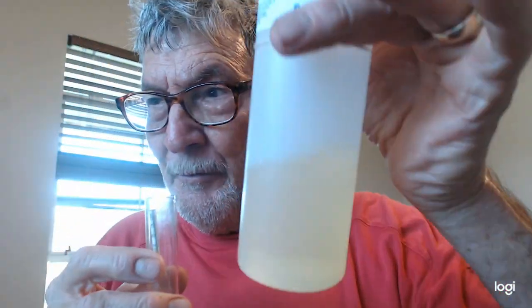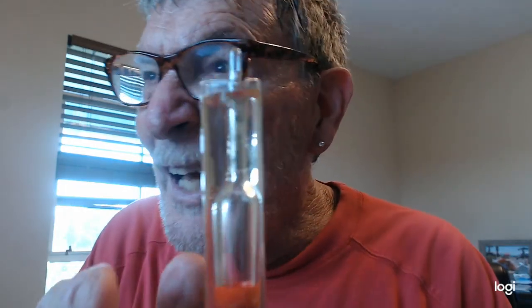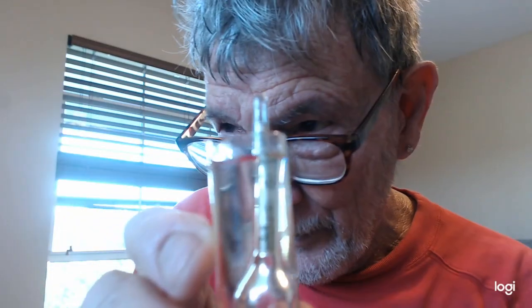I'm going to pour this factory-made normal urine sample in there until it floats. And see how high it floats. Okay? The top of the urine sample is floating at a number. And on this urine sample, it's floating at right about, it's about halfway between 1.010 and 1.020. I doubt if you can see that. You really can't.